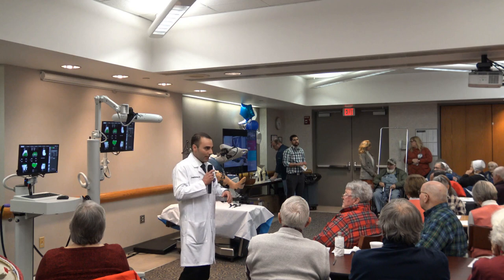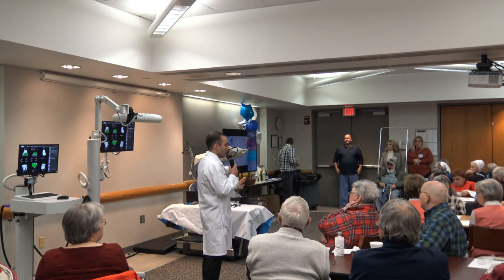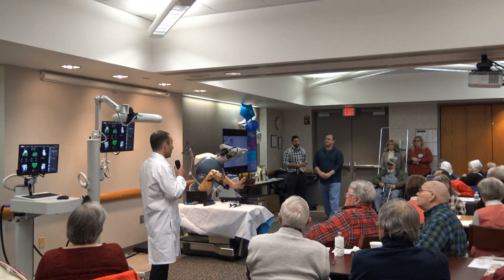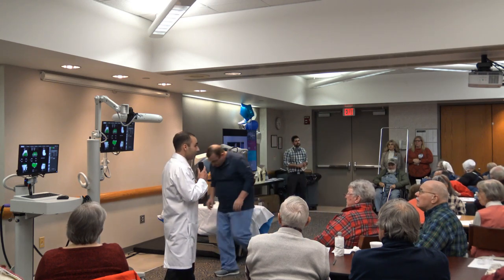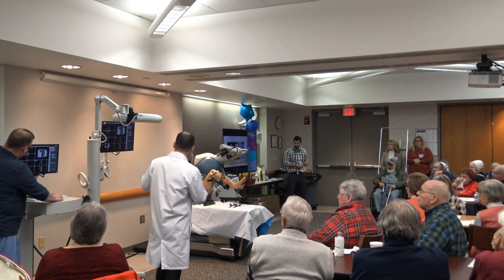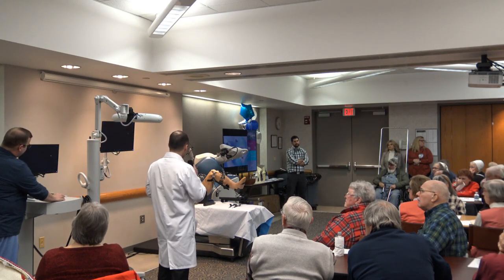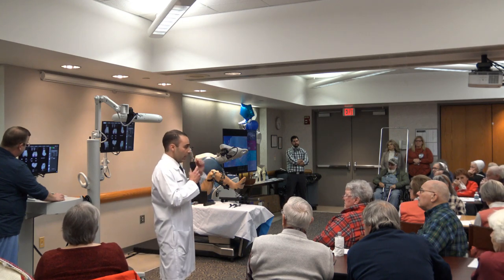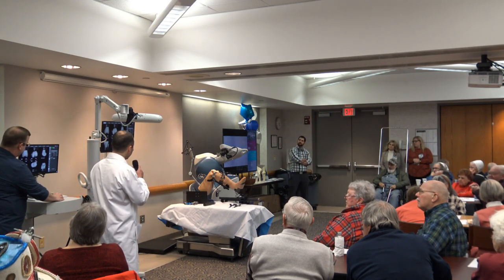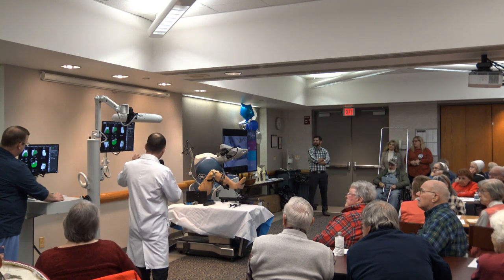With that, I'm going to talk about the technology. We'll start with total knee, but most of the information carries over to the hip and the uni application. It all starts with a CT scan from the hip to the ankle, which gives us a 3D model of the individual patient's anatomy to more specifically size and position the implants. One of our goals is to achieve what's called a mechanical axis — an arbitrary line from the center of the hip to the ankle — and we can plan that with these models before we even get into the operating room.